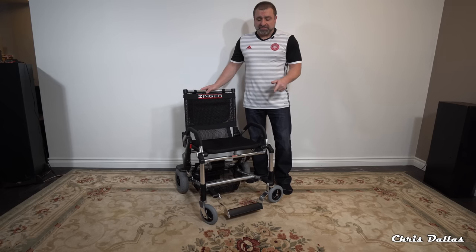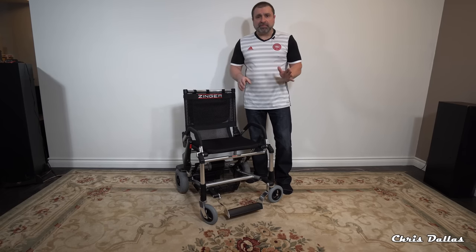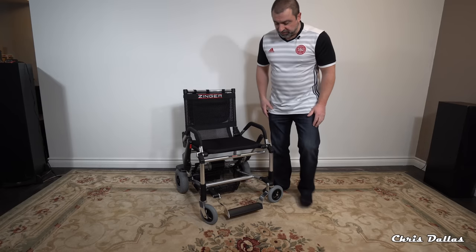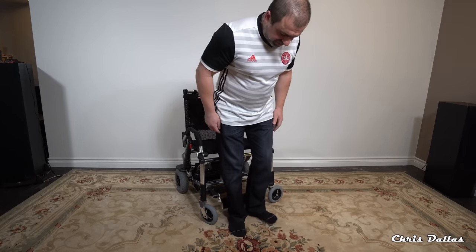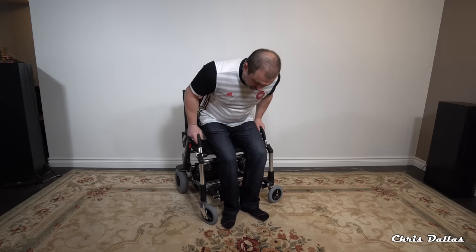The chair's got a great mechanism at the front so you don't have to fold and unfold the footrest — it just swings. See? It just swings back and forth, so if you want to sit you go right behind the chair, swing it backwards and sit down, then just let it go and there's your footrest.